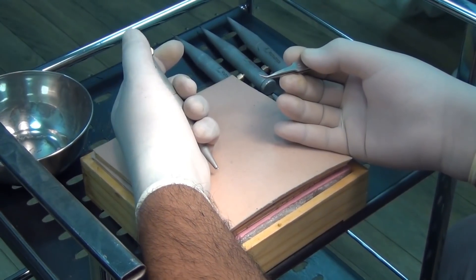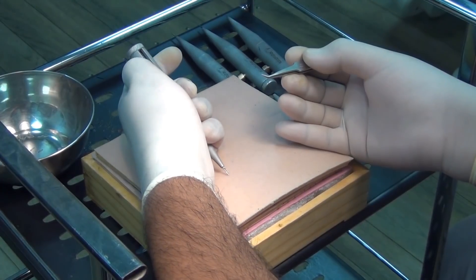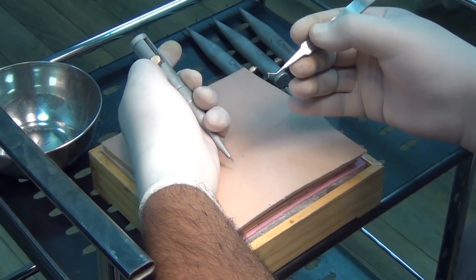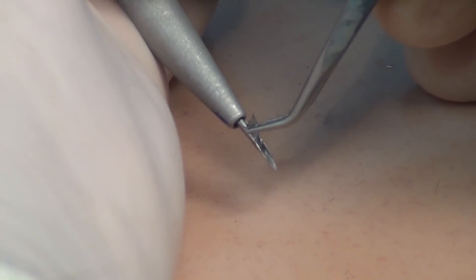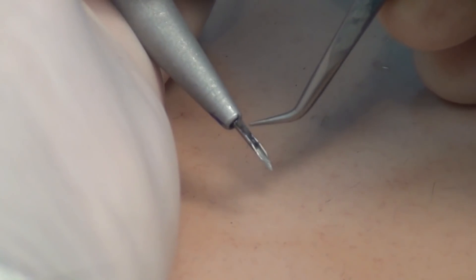The graft engagement process. Press the plunger to its full extent and lock it. Now simply place the graft in the exposed needle slit, with the upper end of the graft lying free from the needle. The pen is now ready for implantation.